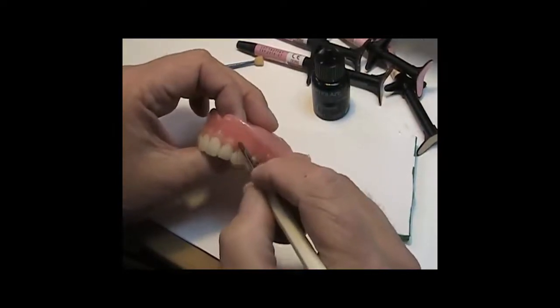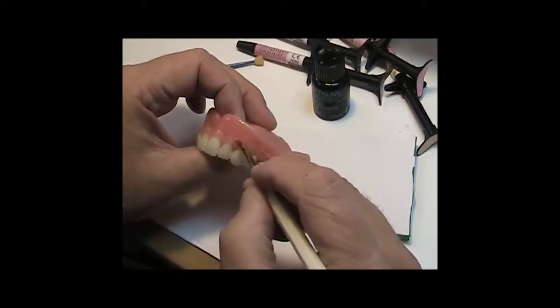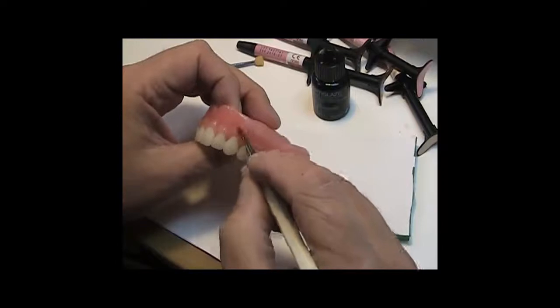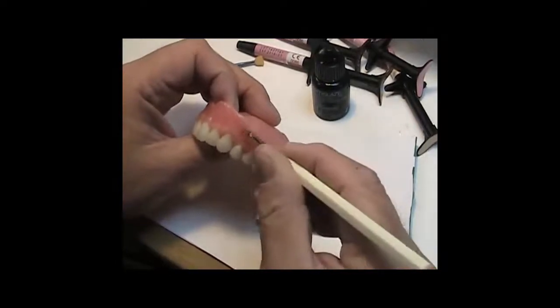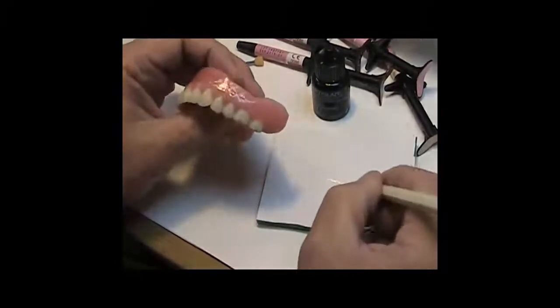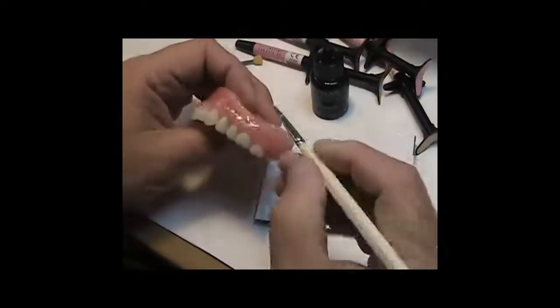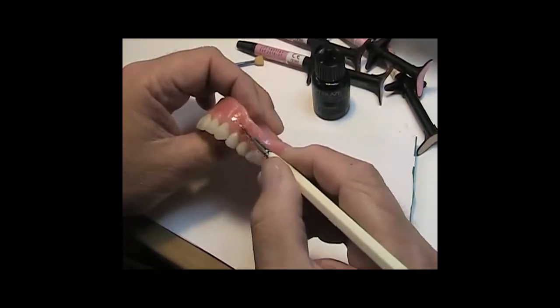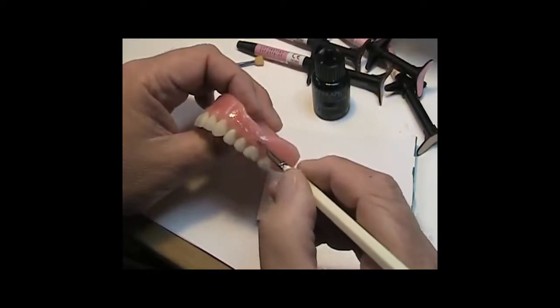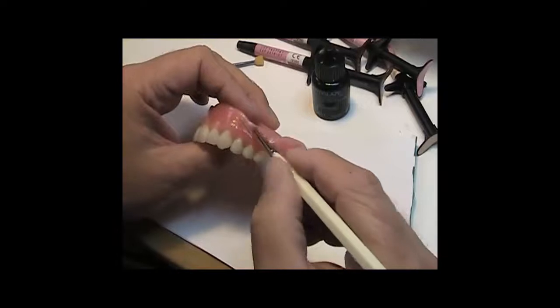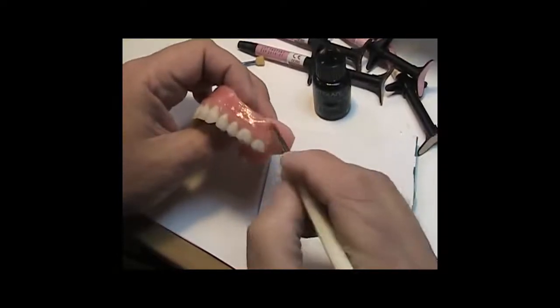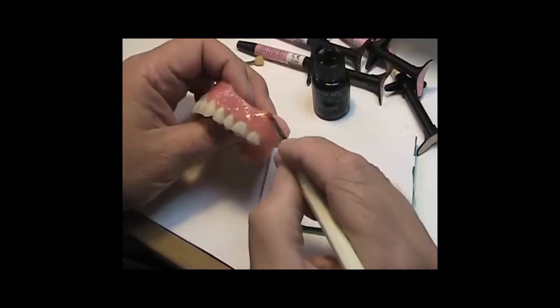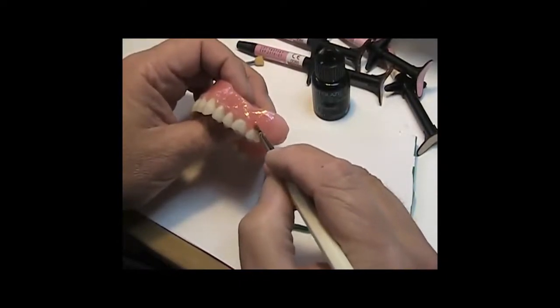By the way, you should check out the science behind OptiGlaze. This is not your daddy's clear, light-cured varnish because it's not light-cured varnish. What it is is light-cured nano-composite clear resin, which has a better resistance to brush strokes and wear than raw composite or acrylic alone without it on there.